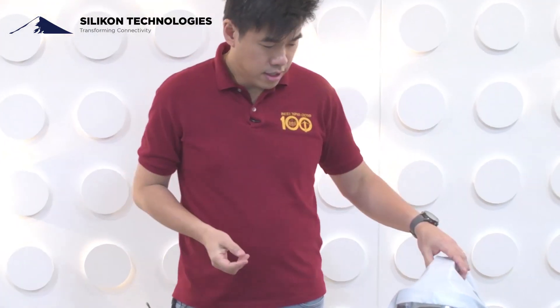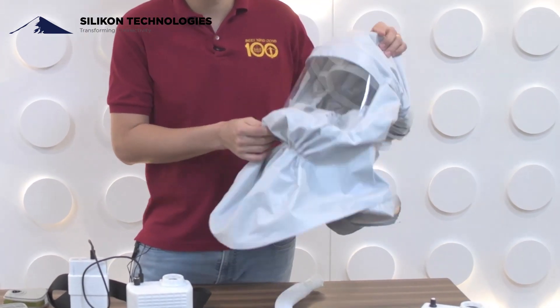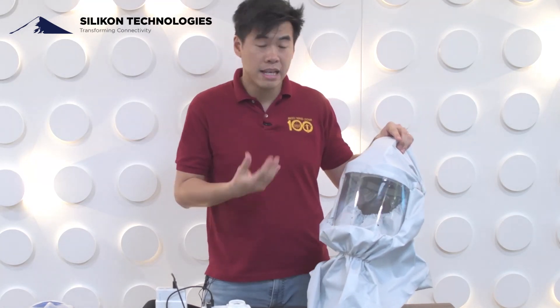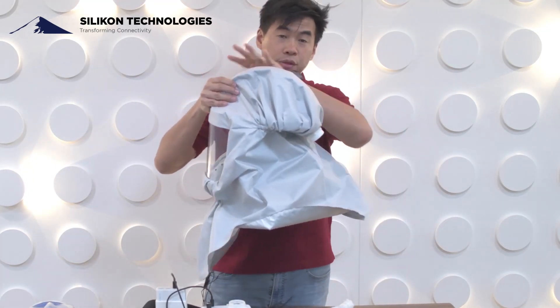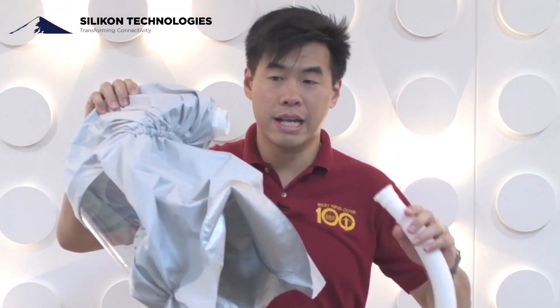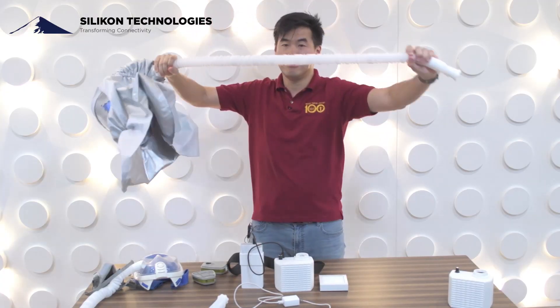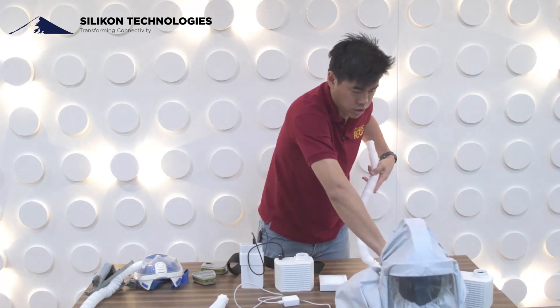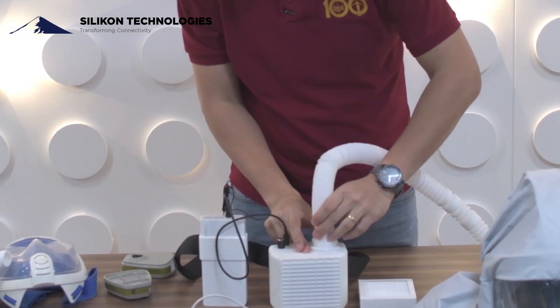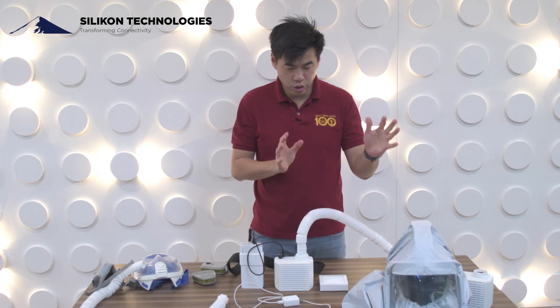For the hood version, it is locally made and readily available, making it very cost-effective because the hood is disposable for sanitation purposes. We have a frame inside with a hose connector — you connect the hose here, stretch it on the other side, and hook it up to the air filter.